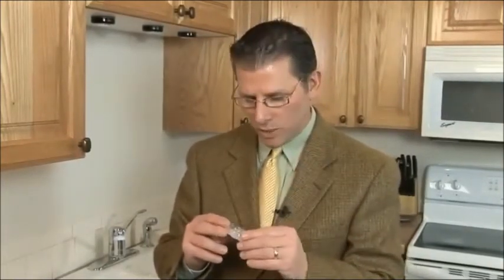what you want to do is have a night guard that does not allow the back teeth to touch. And so that's why we designed the SmartGuard. That's why TMJ dentists and other dentists alike make custom made TMJ splints and TMJ night guards in such a way that the back teeth don't touch.